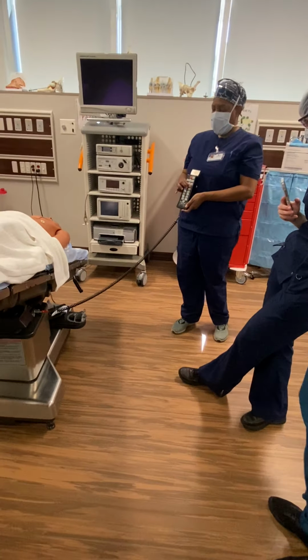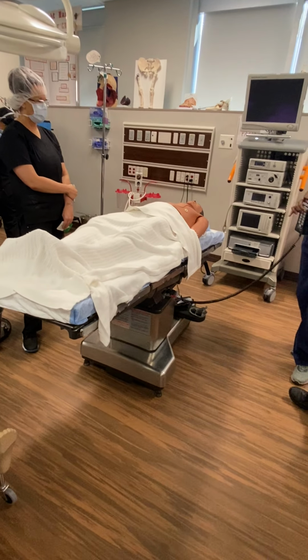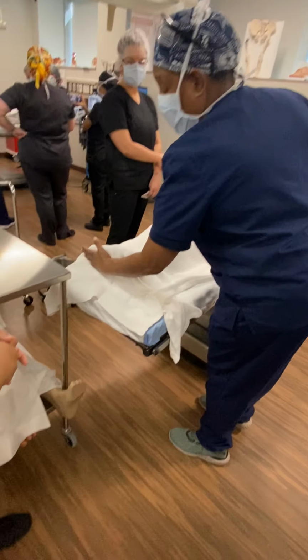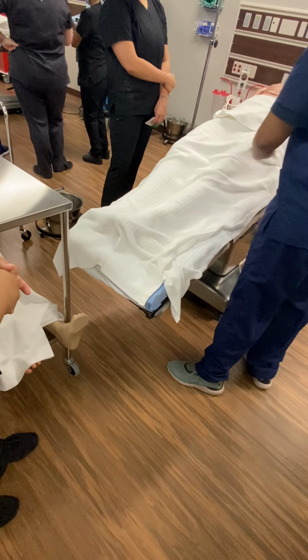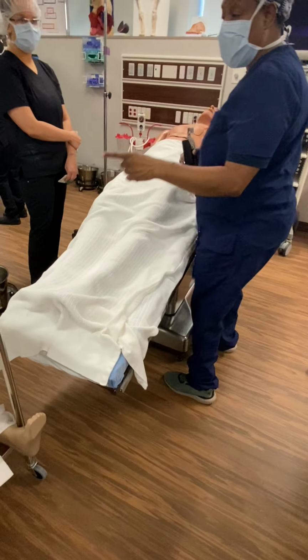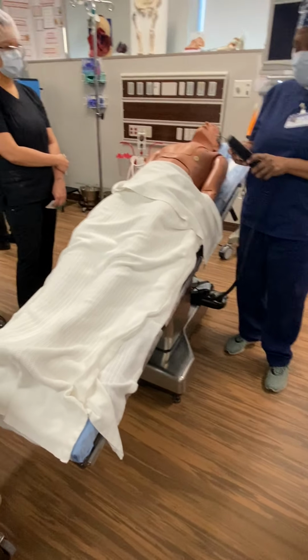Now, we don't want a lot of reverse pressure on it. Trendelenburg is that way. Now, in some cases, they may have you go really straight up, and you'll have a footboard down here, so the patient won't slide out. But always, the patient is going to be strapped in. Sometimes it'll be hanging down like this, I'm moving it, but the patient is always strapped in, okay? So remember that.